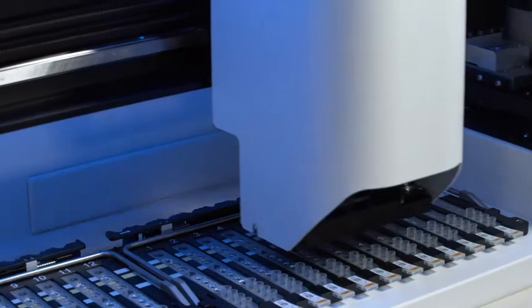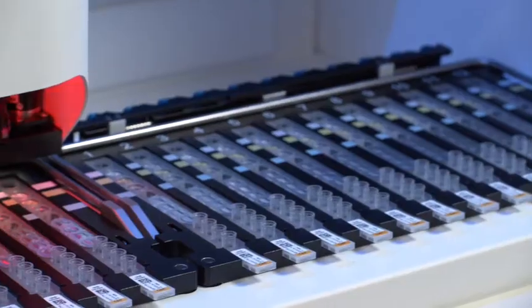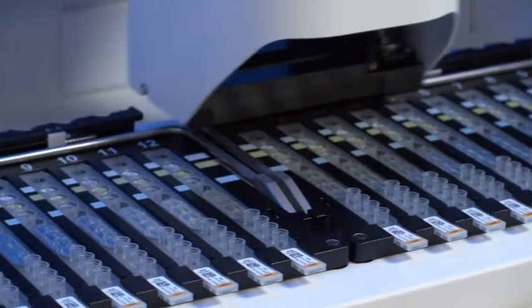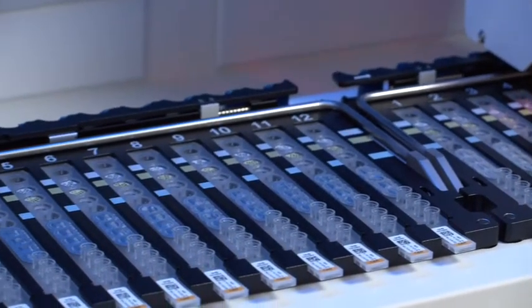The BD MAX system automates sample extraction, nucleic acid amplification, and detection of the target nucleic acid using real-time polymerase chain reaction.